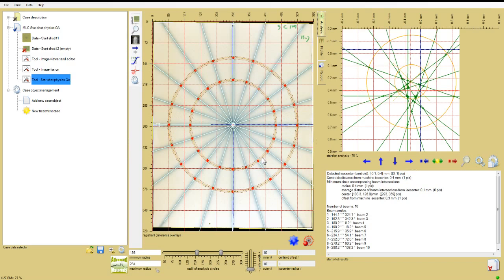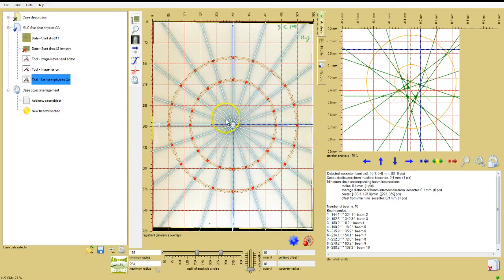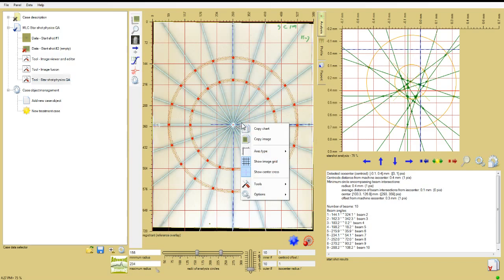The smaller circle should be a quarter to half the diameter of the large circle. Smaller is generally better, but if the diameter is too small, the maxima along the circular path become less distinct, as the dose of the film fills in the decreasing space between the beam lines. Right-click on the image in the image window and select Axes Type.